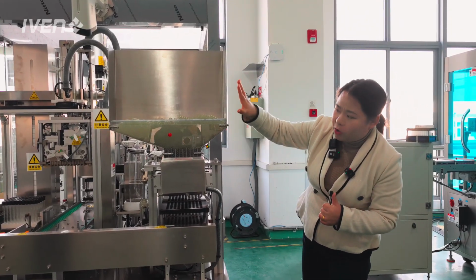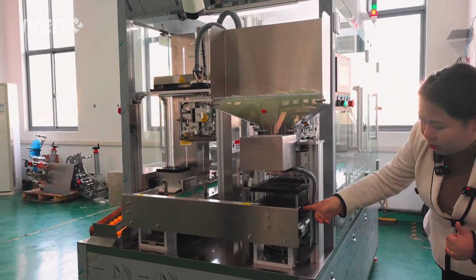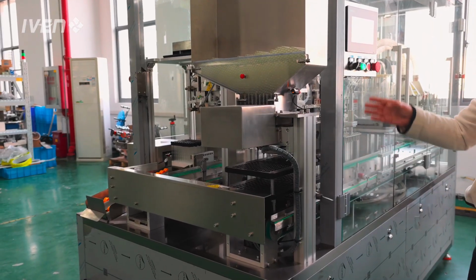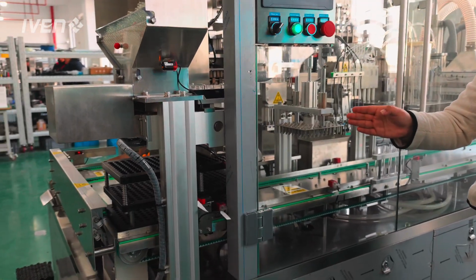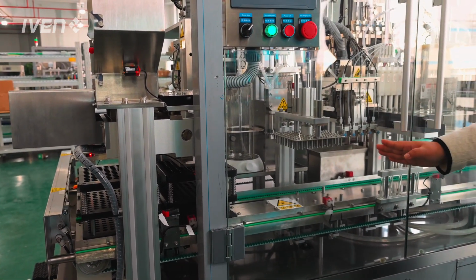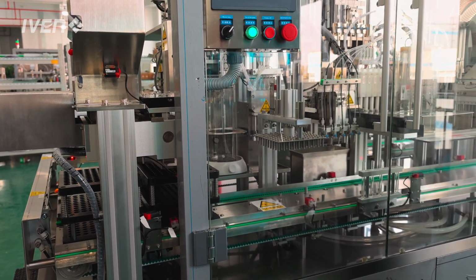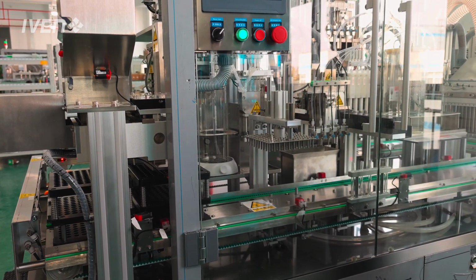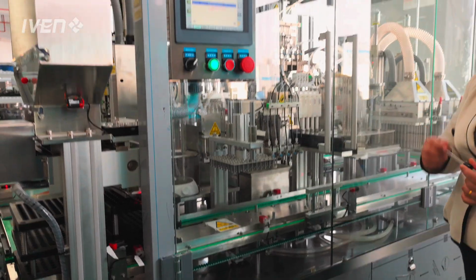The tube fits into the holder station and into our racks by the automatic mechanism, falling into the foam trays, falling into the racks, 10 pieces each time, and then transferring to the next station, which detects if the tube is inverted or falling in the wrong direction. So we give the detection here.